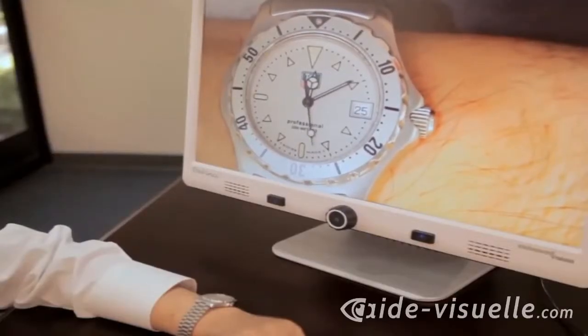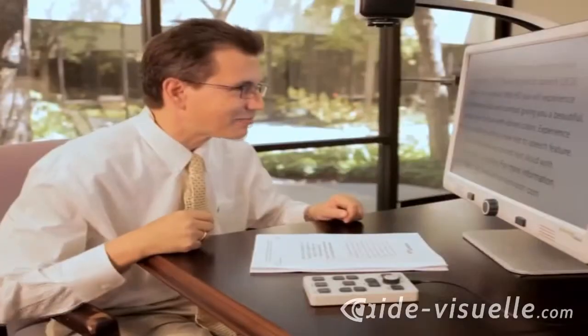I can literally, if I can't see what time it is, I can put my watch underneath and actually see the date for the first time in probably years.